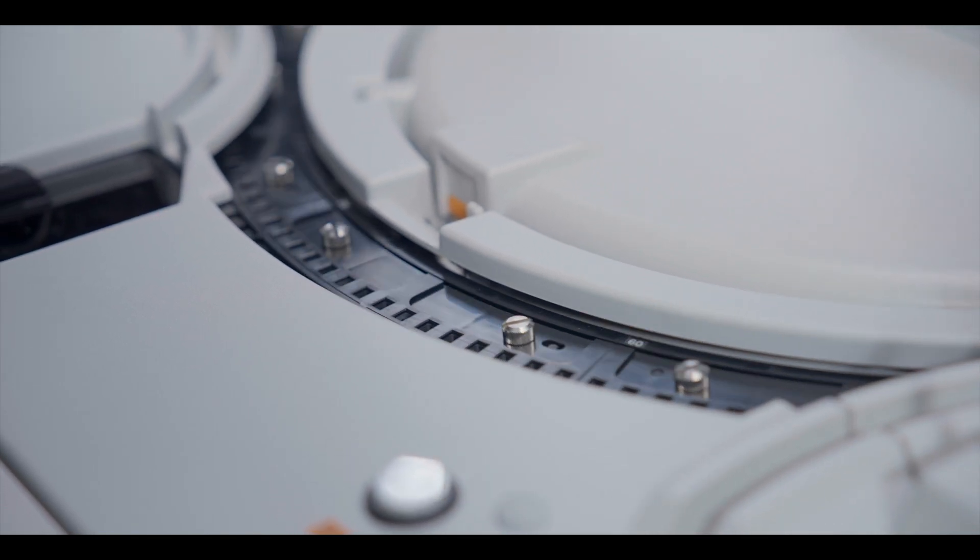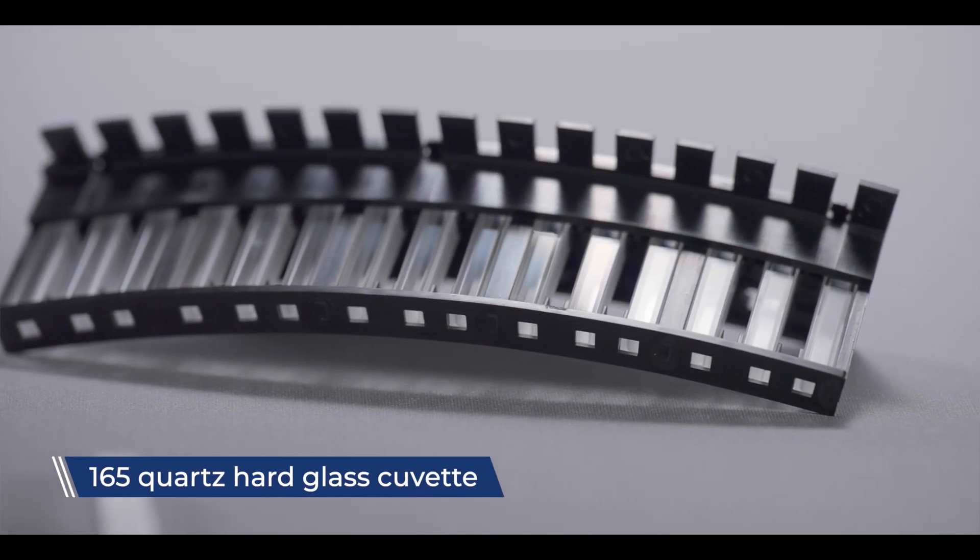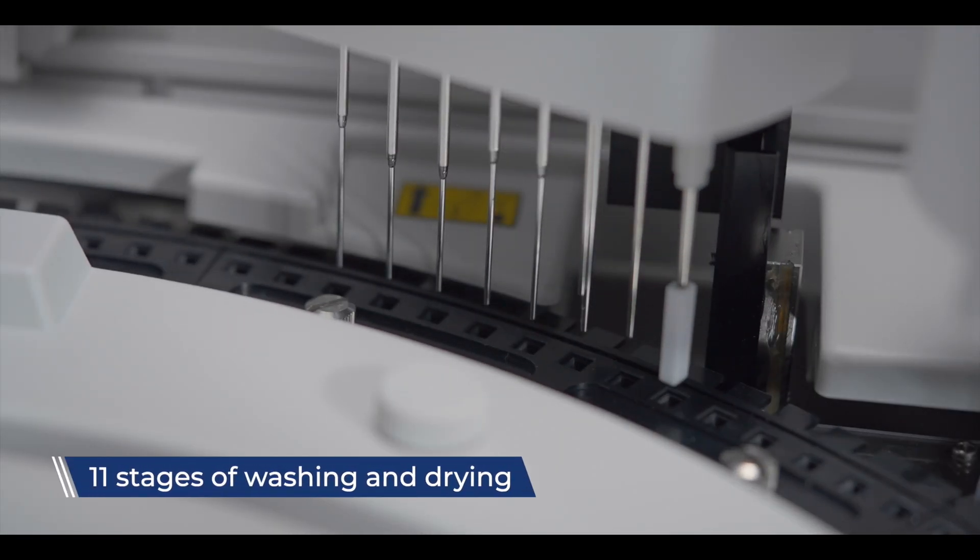The instrument employs durable quartz hard glass cuvettes, totaling 165, which undergo an 11-stage washing and drying process in the onboard cleaning system.